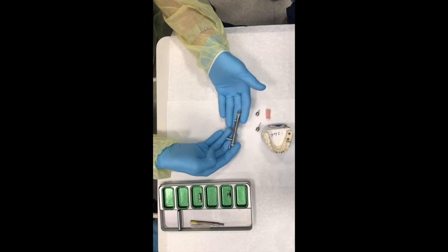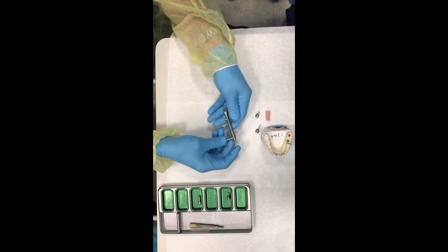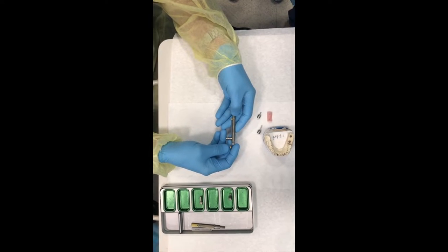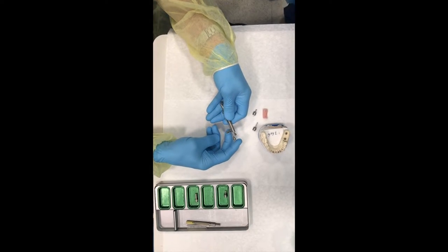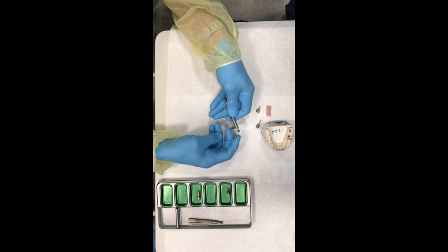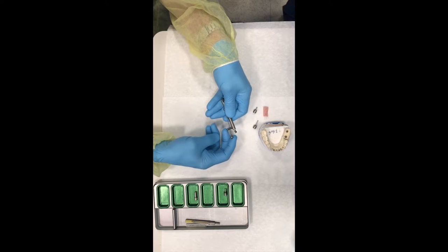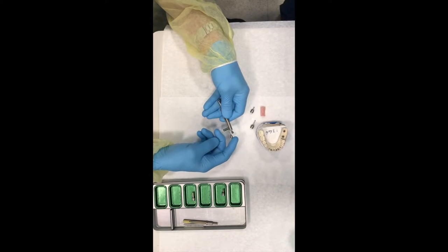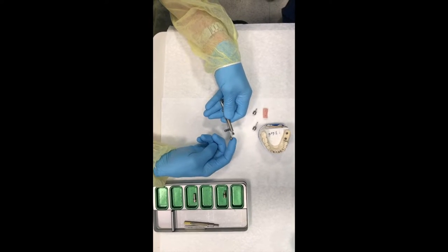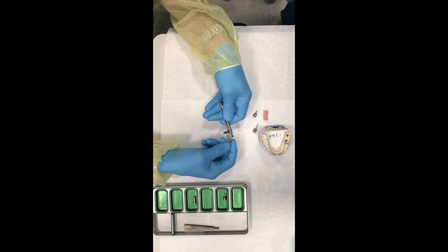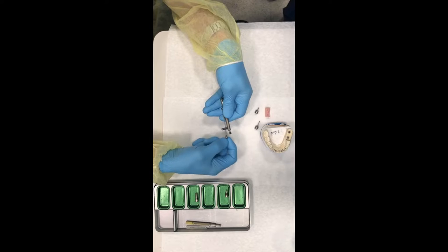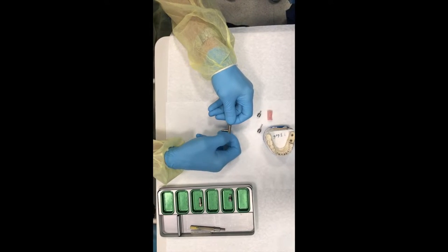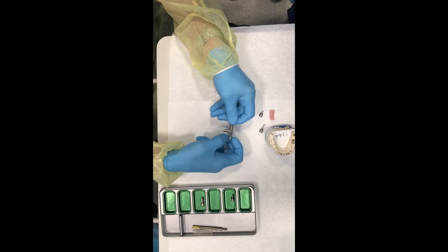This is the torque wrench itself, and this torque wrench is not a friction torque wrench. It's a spring torque wrench. It's a spring because this is considered to be a spring. Anything that's metal and flexible, it returns back to its original position, is a spring. So what we do when we tighten is we pull on this little teardrop shaped knob here. We don't touch it here. This is where we do the pulling.